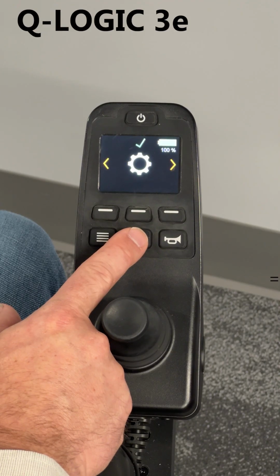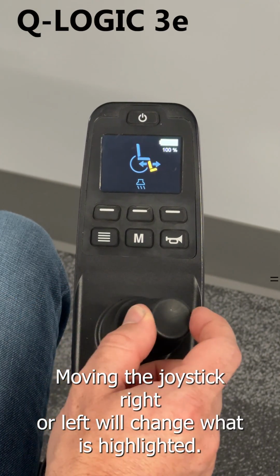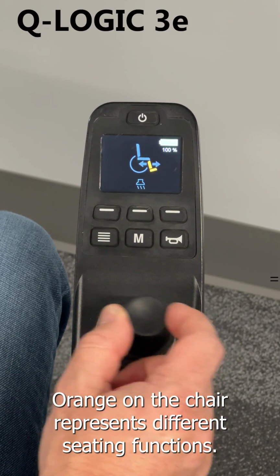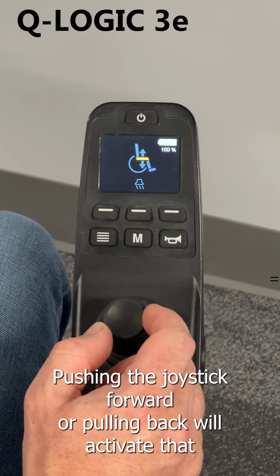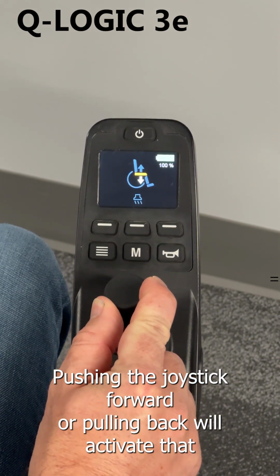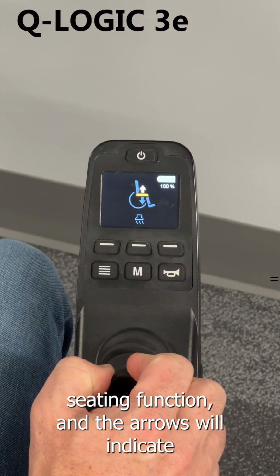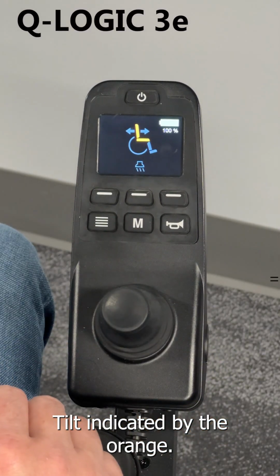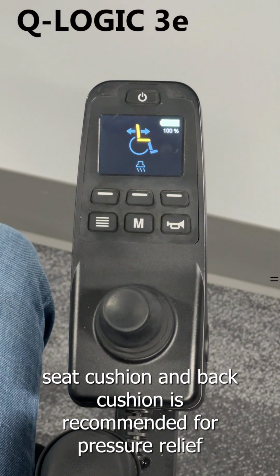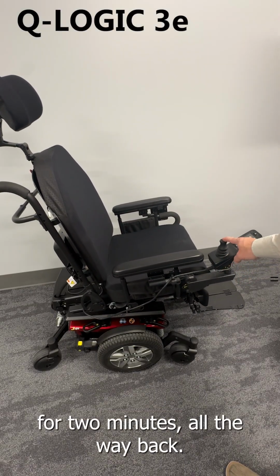or information. And then seating. Moving the joystick right or left will change what is highlighted orange on the chair, representing different seating functions. Pushing the joystick forward or pulling back will activate that seating function, and the arrows will indicate the direction that it is moving. Tilt, indicated by the orange seat cushion and back cushion, is recommended for pressure relief every 30 minutes for 2 minutes all the way back.